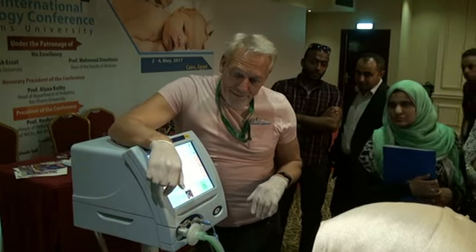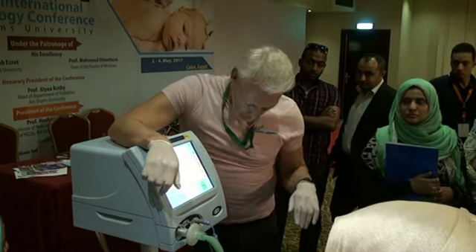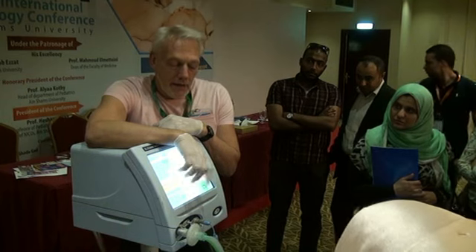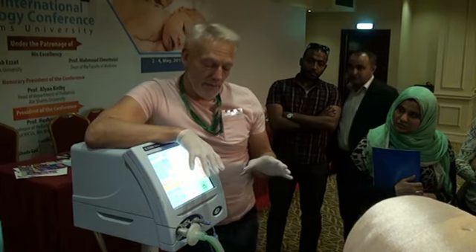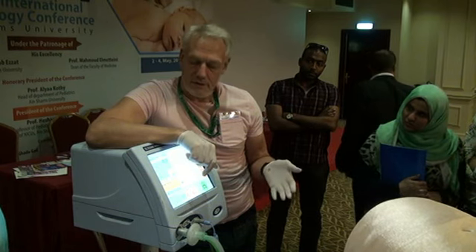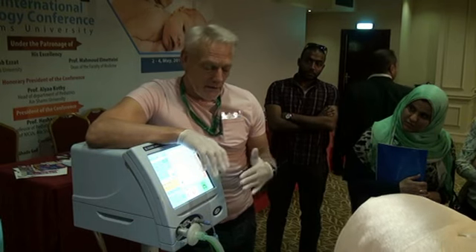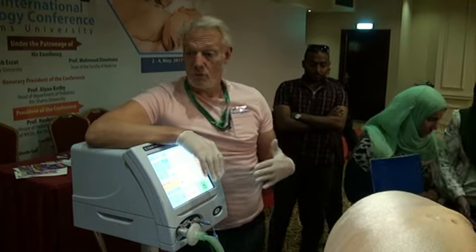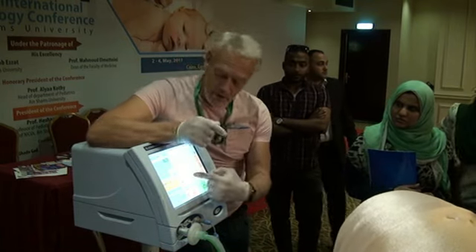Does the work of breathing affect my judgment? If the baby is having difficulty breathing or signs of respiratory distress, that means my ventilator is not acting so well. Usually a baby is intubated because you were worried about the work of breathing, so the ventilator needs to make sure that it's helping the baby. If you think a baby is stressed when it's intubated and ventilated, then there's usually some mismatch. Something is wrong. Why is the baby stressed and why is the baby working? So we then need to look at modes of ventilation and synchrony and I time and our graphs.